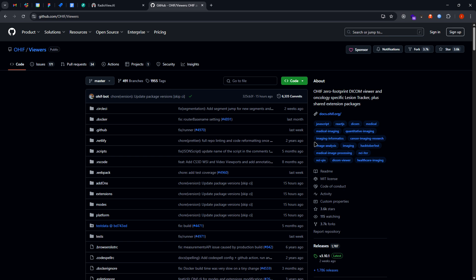So our clients have some custom requirements that we have to meet. We also needed to use OHIF as our DICOM viewer, but along with OHIF we also had to add features on top of that.